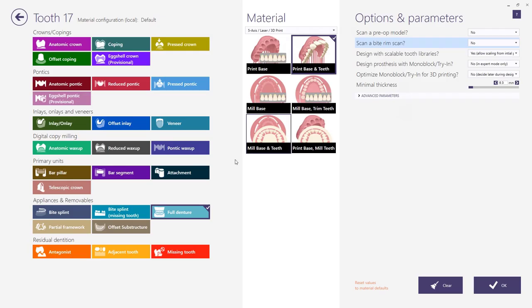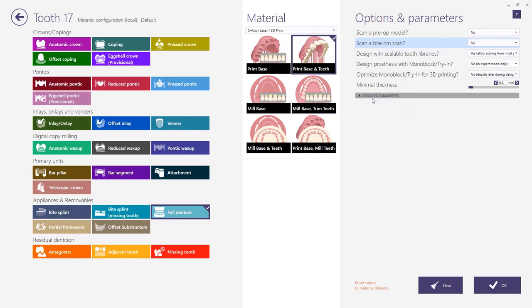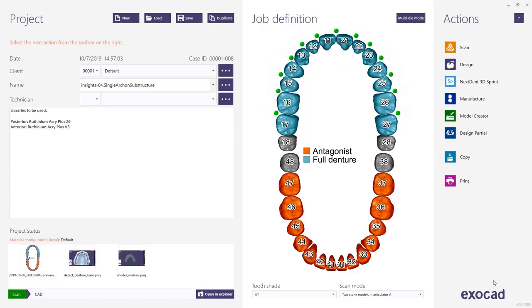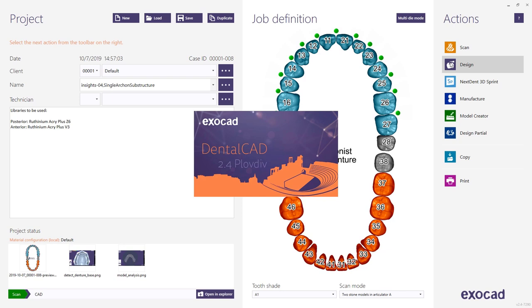For this design we select the work type full denture. Instead of a material selection we get a selection of production methods and choose print base and teeth. The parameters for dentures are completely different than for crowns and bridges, so I'm not going into detail over all of them. Please note that I activated connectors for the whole denture, and after this I simply go to the design.